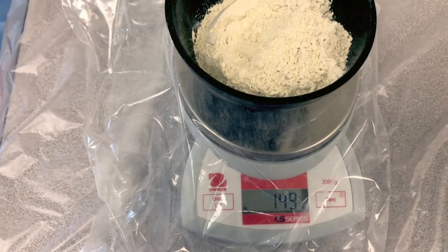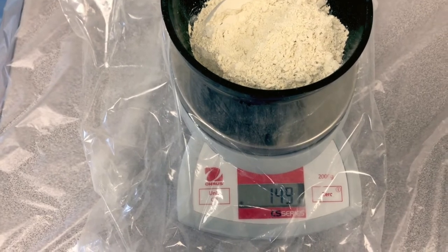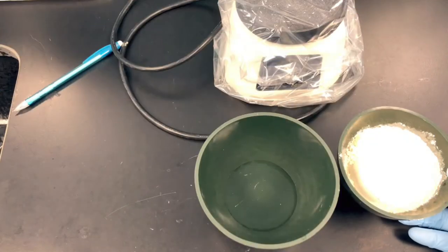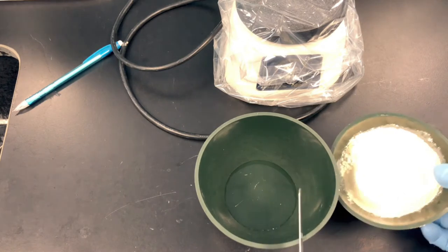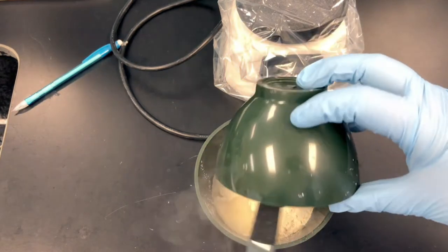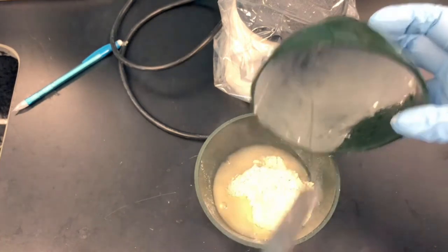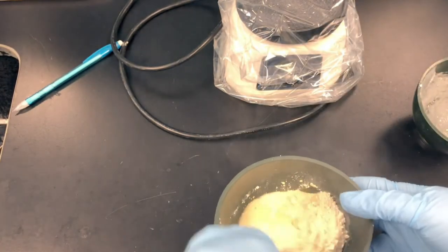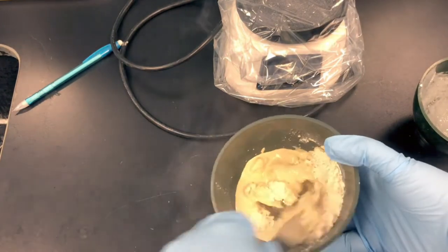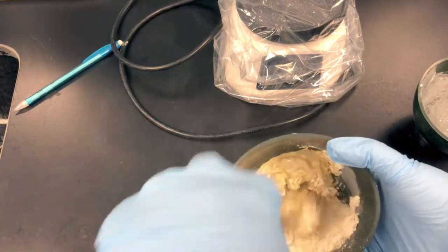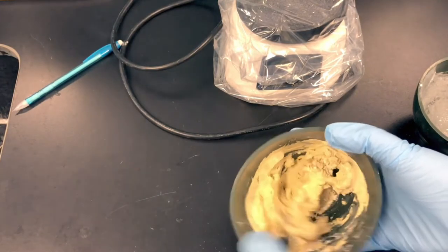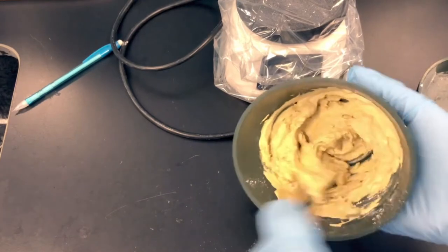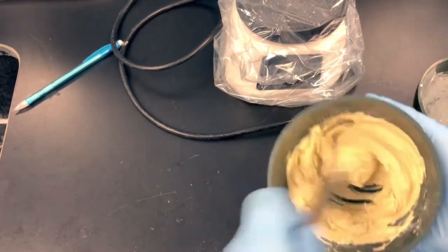Now I can add the powder to my water and start my mixing. To mix your materials, always add powder into the liquid. This will help incorporate it more uniformly and prevents pockets of powder from being created. Stir it up to incorporate all of the powder into the liquid. That just helps prevent excess powder from popping up into the air. Give it a vigorous stir.